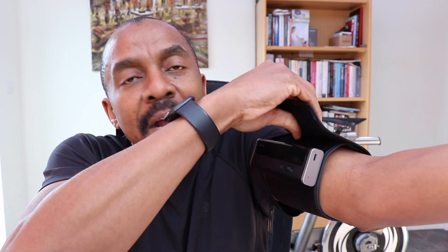To use this blood pressure monitor to take blood pressure readings, it is fairly straightforward. All you have to do is insert it around the arm and then take the reading. You press it to switch it on and then you press the big button to take your blood pressure reading.